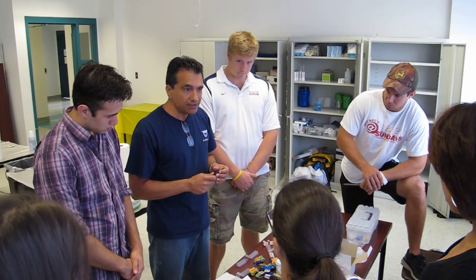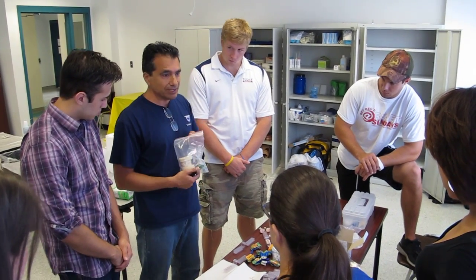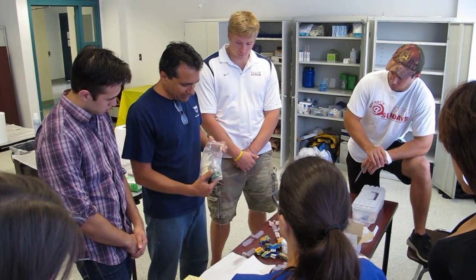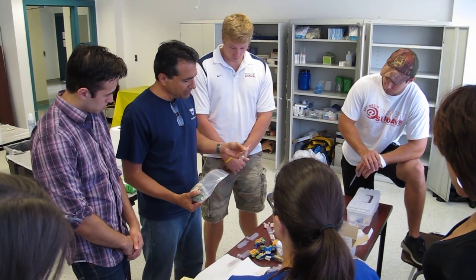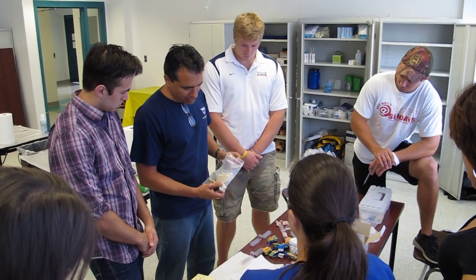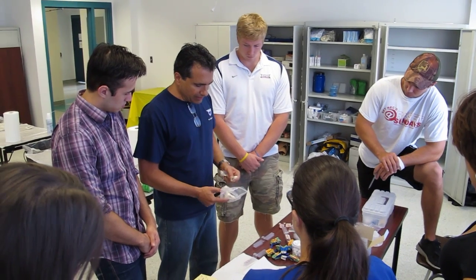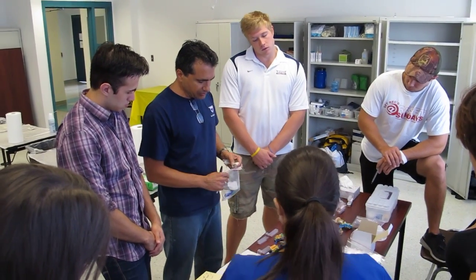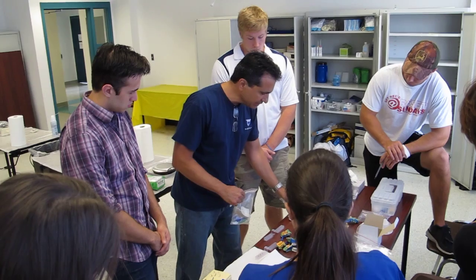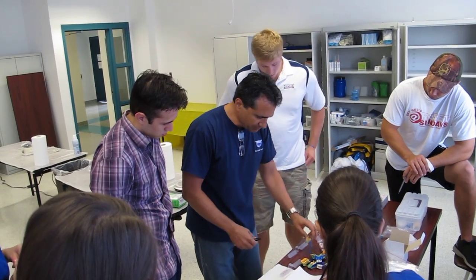This is all new to most of you. When you receive a case from your dental lab, it comes in a nice container — a little die that fits into a model, your impression, and one more thing called a solid model. So not only are we going to create the articulator, but we're also going to make an extra solid model with your final impression today. Now let's go back to your impression.